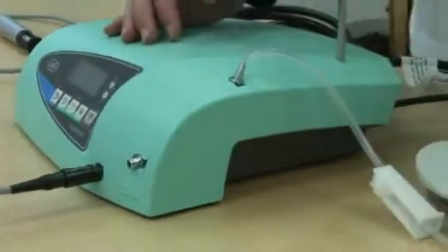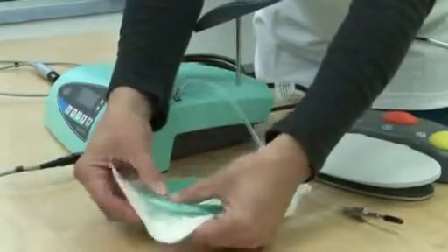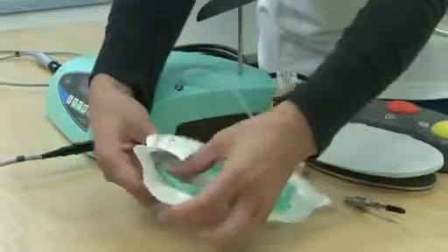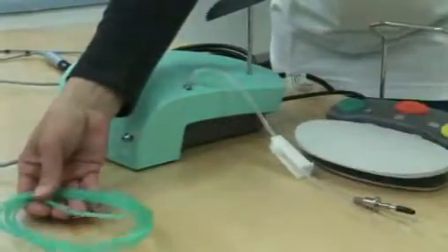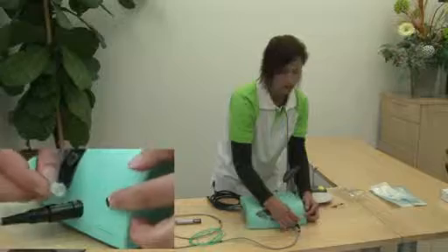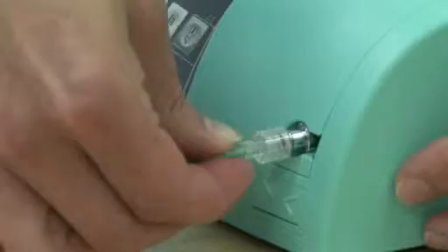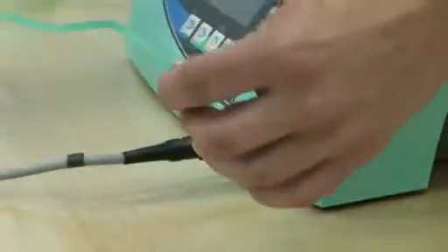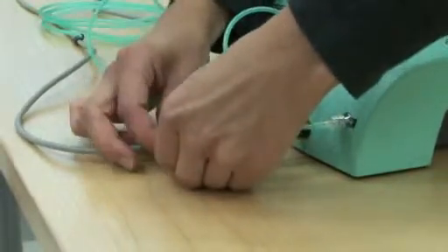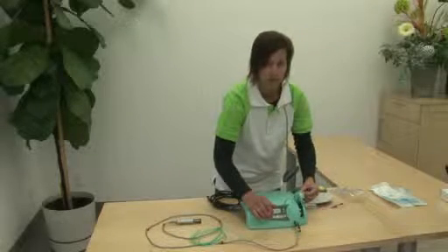From there we will take the green tubing. If you push gently on the lure lock side, puncture through the paper. Pull the tubing out from the package. Take the plastic lure lock end of the green section and attach it to the metal end of the pump tube complete, turning it clockwise. And just like our other irrigation system, you want to leave some slack here as well.